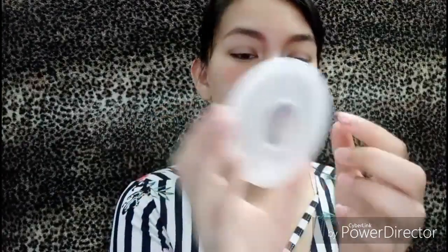Plastic po kasi siya, washable. Tapos dito po, rubber po siya. Natatanggal po yan — natatanggal siya. Para pwede mong hugasan after mong gamitin, diba? Tapos, guys, may butas din po siya dito. Para kapag puno na po siya, pwede nyo na lang ilagay sa bottle ni baby, diba?